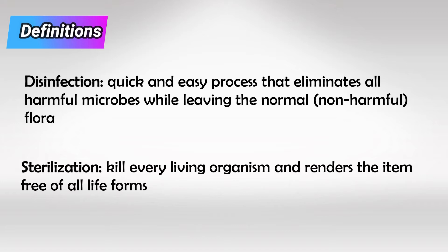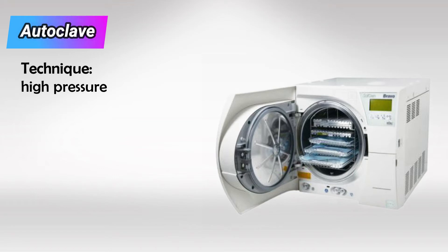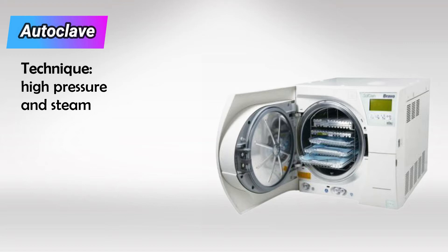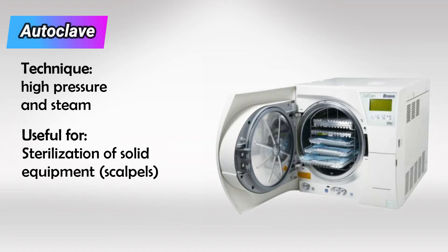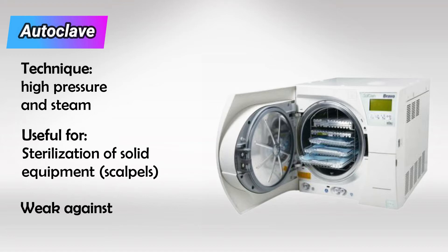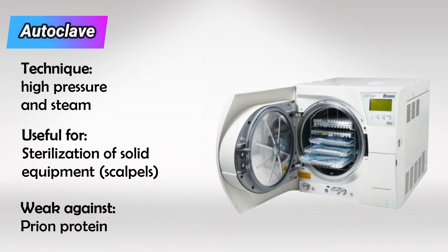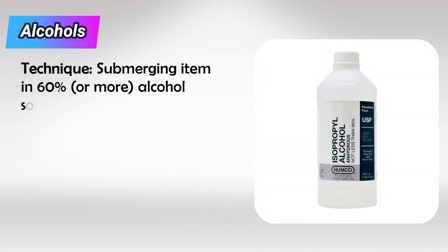Most surgical equipment is sterilized. Starting with the most reliable sterilization technique: autoclave. To use it, we put the equipment we want to sterilize in a chamber with very high pressure and steamed heat. This extreme environment normally kills everything, but it doesn't kill the already-dead prion protein. Next we have alcohol, which is the most common disinfecting method.